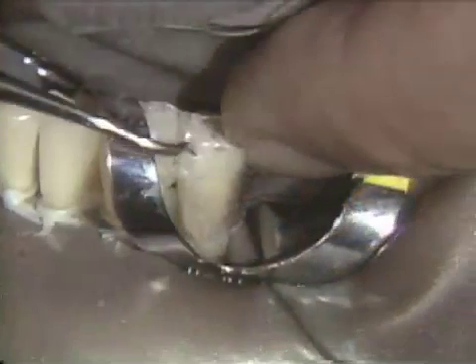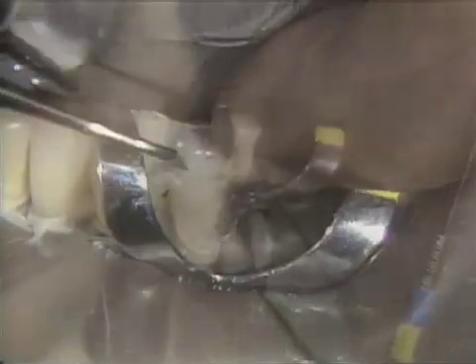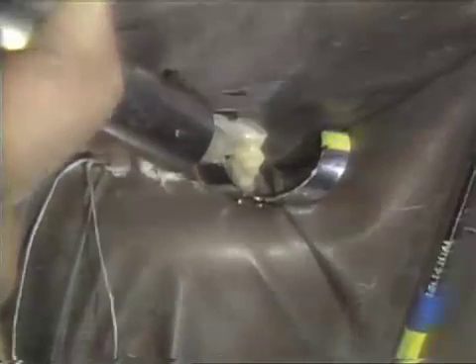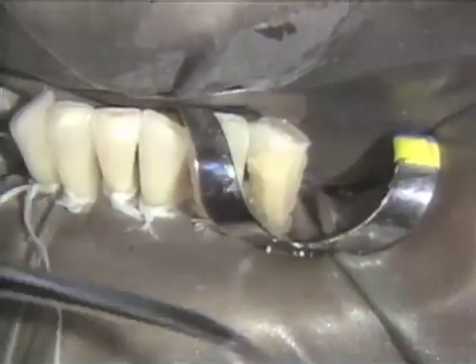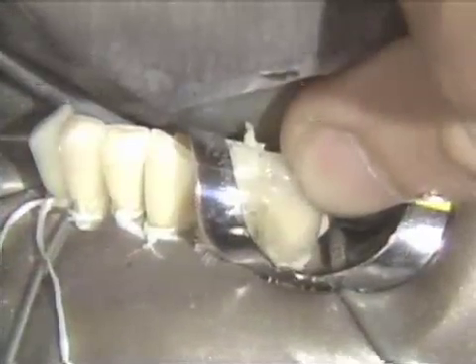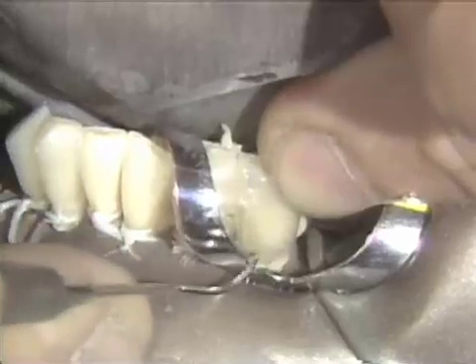The first layer is cured for 30 seconds. Slightly overfill the matrix with composite material to help ensure against voids. A second layer of composite is added directly to the first layer. A good bond will result when the air-inhibited surface of the first layer remains undisturbed. The material is adapted with a plastic instrument. The matrix is placed and seated properly. Before curing, it is important to remove all flash or excess material to minimize finishing time.